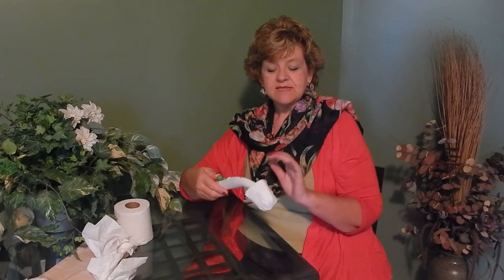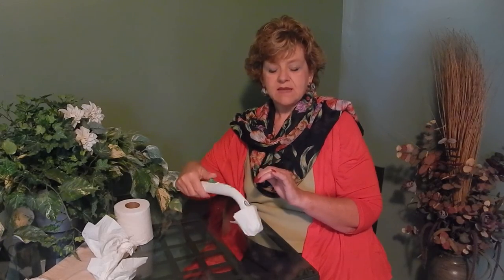The thing about this one is it takes a little bit more shaking and maneuvering of your grippers to get it to shake off, but that's the way he likes to do it.